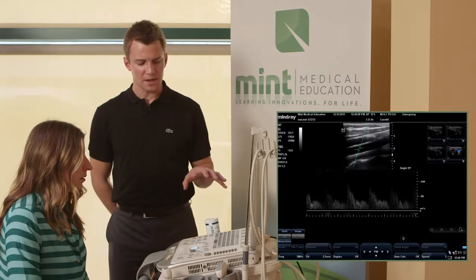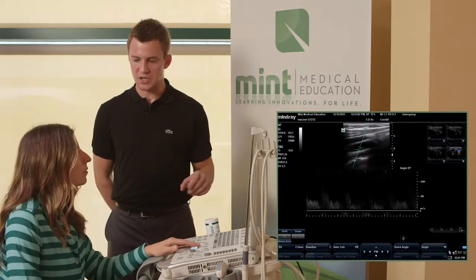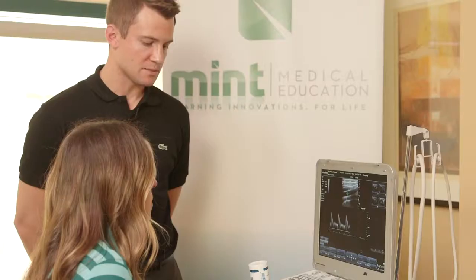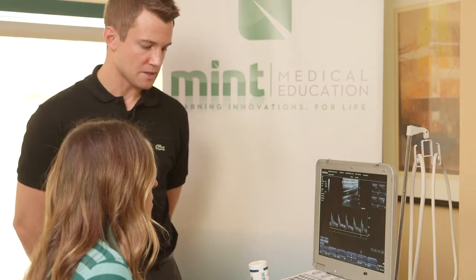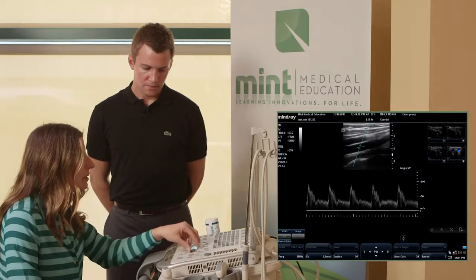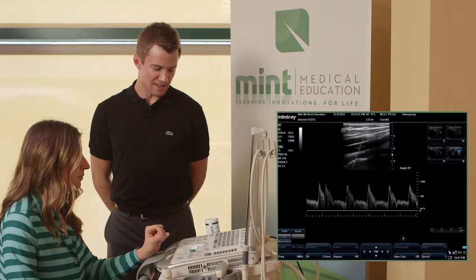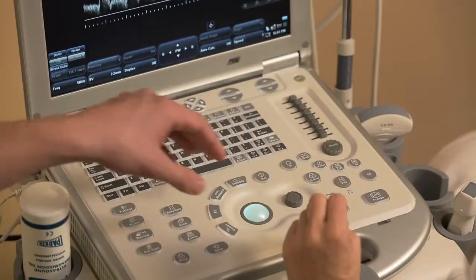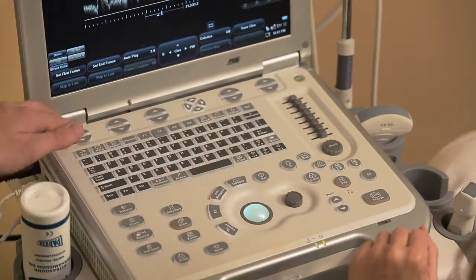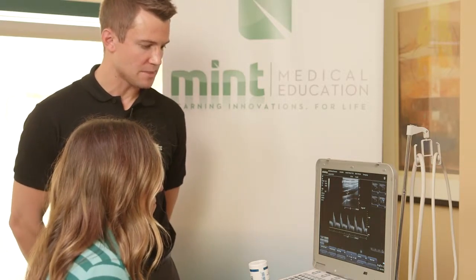It's almost like reading a manual, but doing it physically with the machine, and starting to understand the basics, what makes the machine unique, and where the button layout is. Yeah. I mean, you give so many options of how to maneuver it, whether it's close here or up here, that gives everybody options. And people find that niche of what they like. Some people absolutely love always using the trackball or the rotary nav key. Some people I've worked with just love to come up here and toggle with those soft keys. So it's nice that there are options with that.